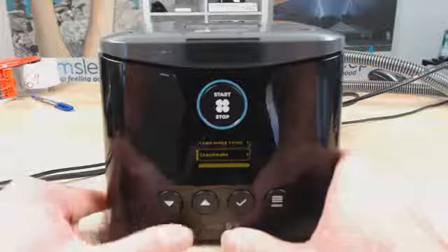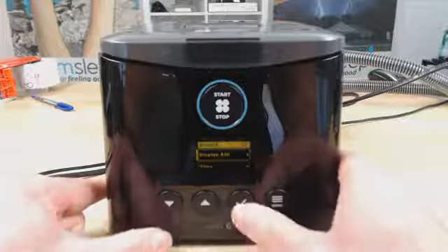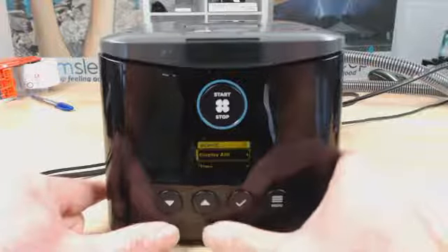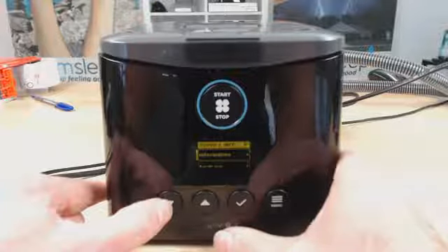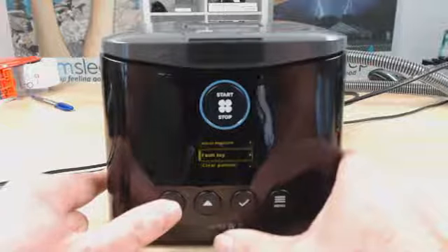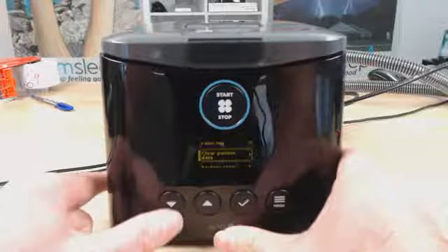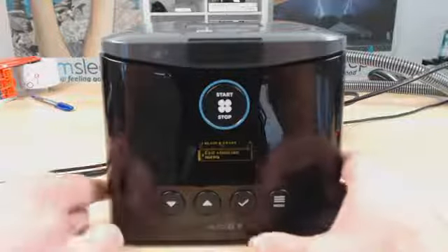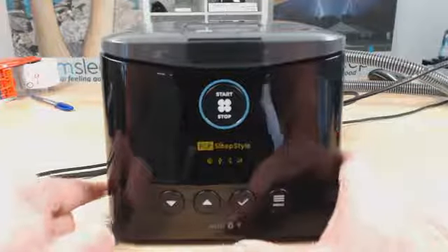Yes, okay, whatever. Scrolling down a bit more, the device display AHI. Yes, we want to display AHI, so that's a tick there. Go down again, time, you can set the time, language, and then service info, which is like if you get a fault on your machine, you can go in here and check the fault log. You can clear the patient data, so you can clear all the data on the machine if you want to start afresh. You can factory reset, and then you can exit clinician menu, which we're going to do. So that's it. That's all done.